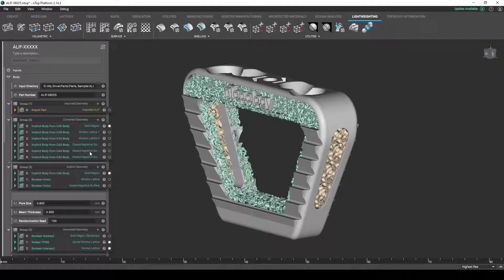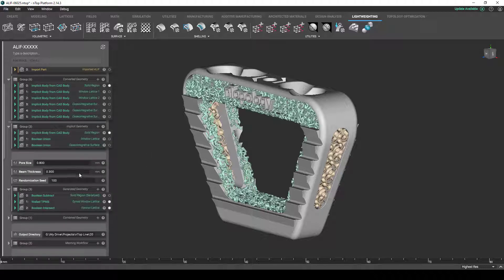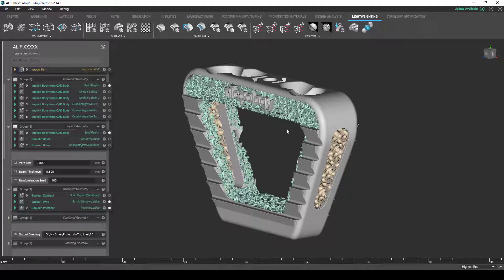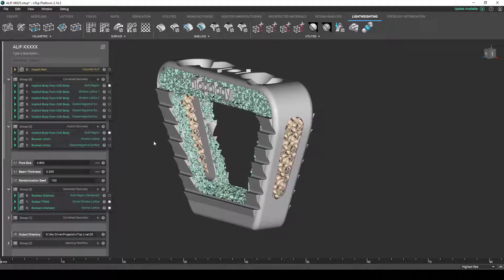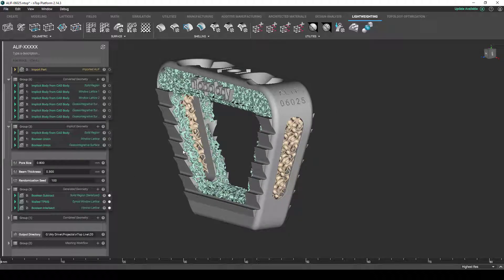And sub-workflows actually exist in this very file. What I didn't mention before was that there's actually a serialization or labeling workflow that is being applied to the solid region. As a part of the design process, I've opted to apply a deboss feature on the corner of this implant to indicate the part number.